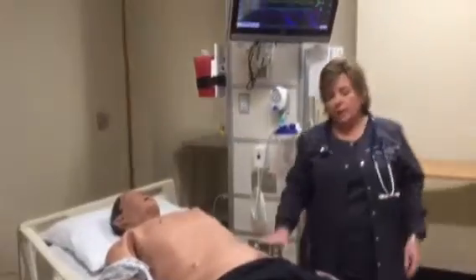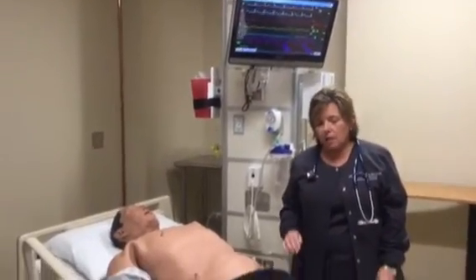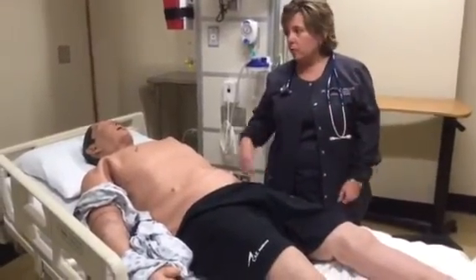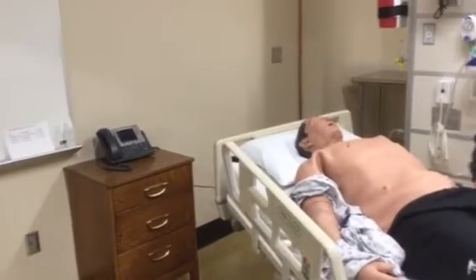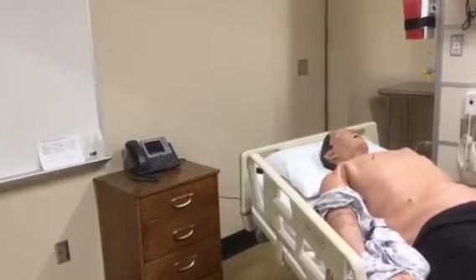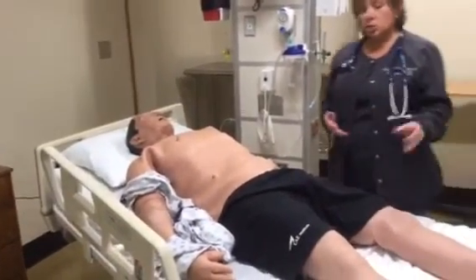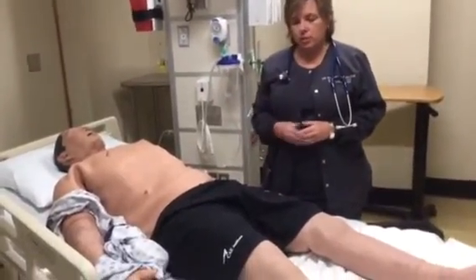So you can catheterize Istan and get urine output. If you do that, we always ask that you use a spray lubricant, which we keep in the room. So if you notice over on the chalkboard, you have a spray lubricant. You just need to do everything the same for the Foley catheter and have one of your peers spray the tip of the catheter with that lubricant prior to inserting.